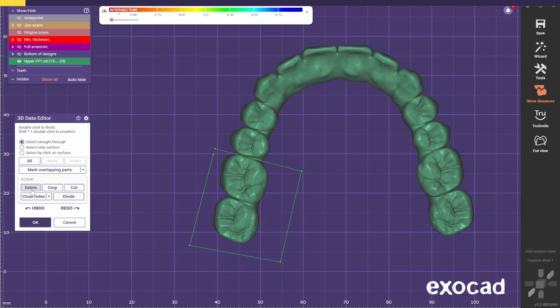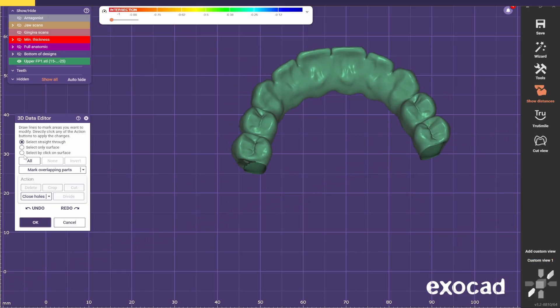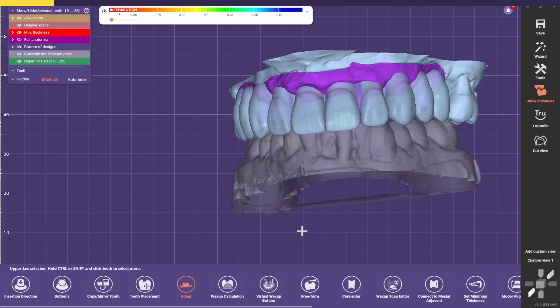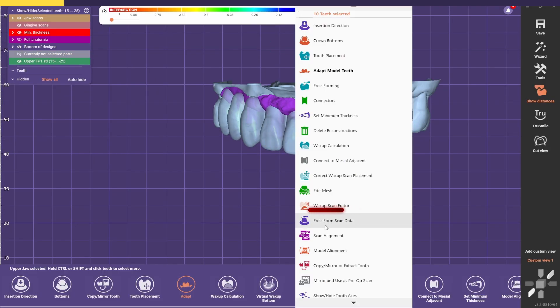Do the same on the other side. Now select this option — Select by Click on the Surface — so I just left-click it to select the whole bridge, and then we select Close Holes. Select OK. Now we've removed the molars, and we left-click on it and use this option so we can freeform it before doing the Waxup calculation.